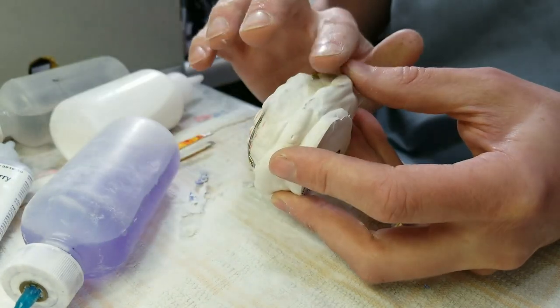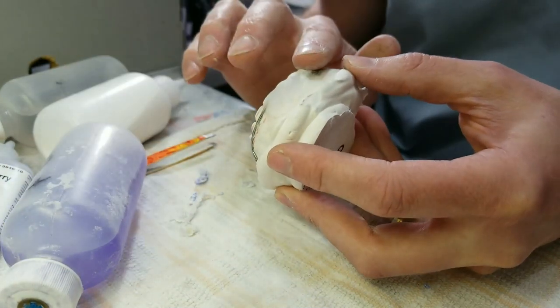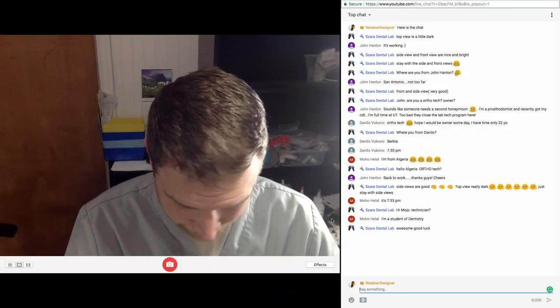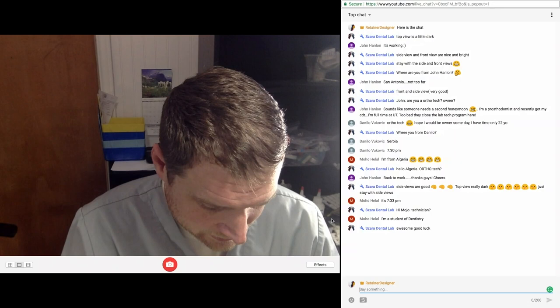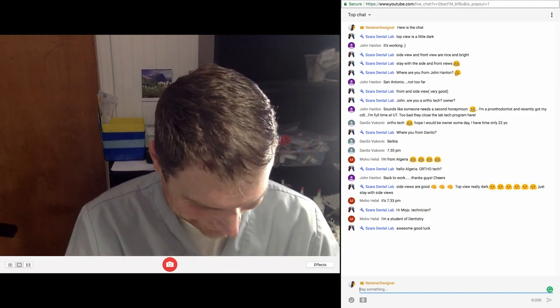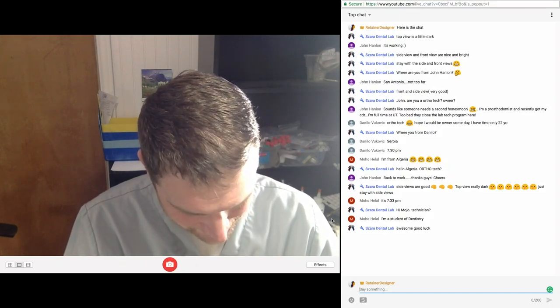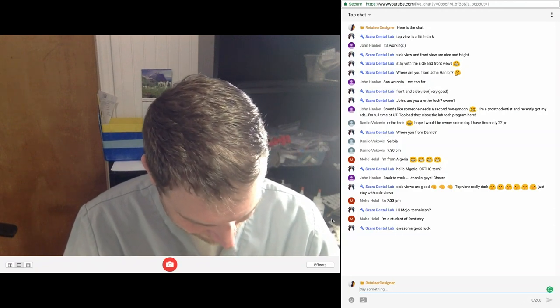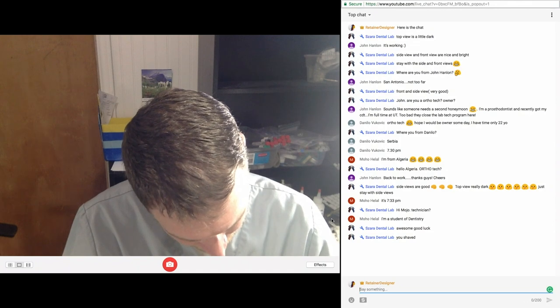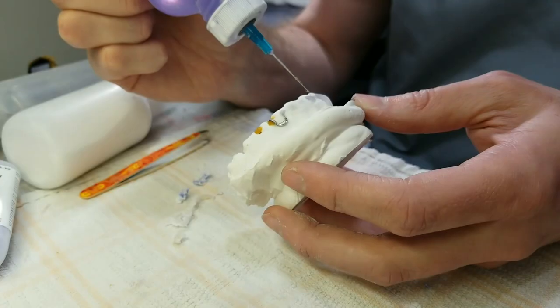We've got another dental student here. I like to make this first layer under the labial bow really wet — I want to get acrylic under there and don't want any air bubbles between the labial bow and the teeth.